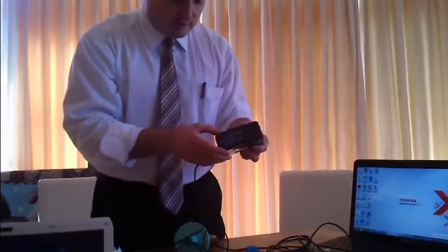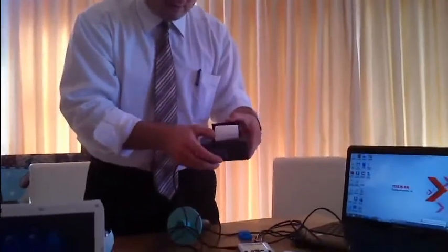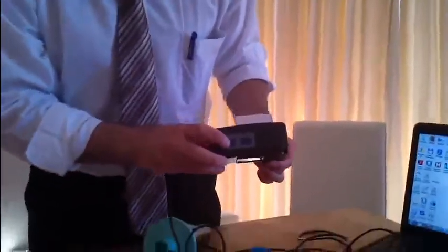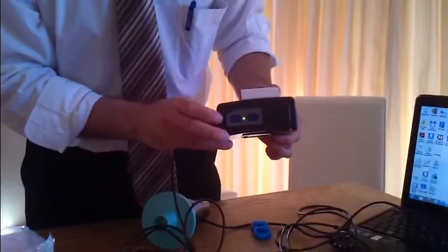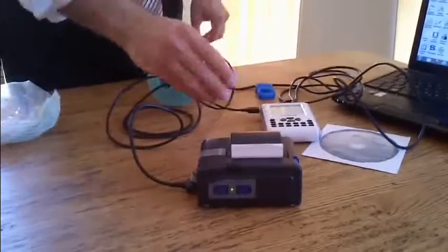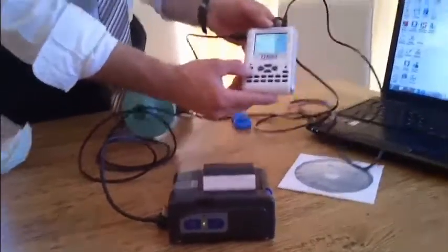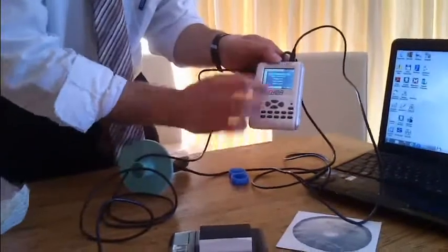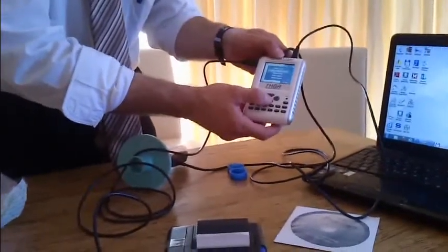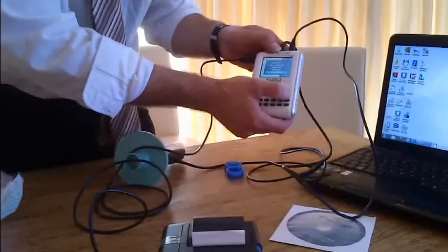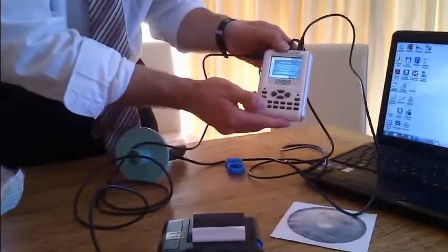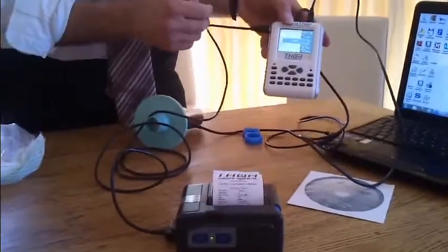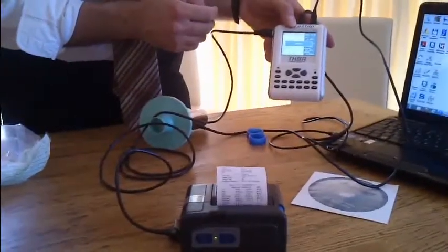Of course, you first check if there is any paper in the printer. This has paper. You switch on the printer. When it's connected and everything is switched on, you go in the menu. You hit the menu button on the spirometer, say print report, and hit enter. It's generating the report. The small handheld thermal printer is printing out the results.